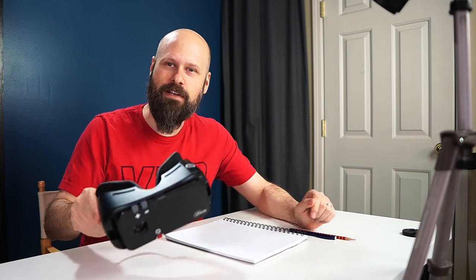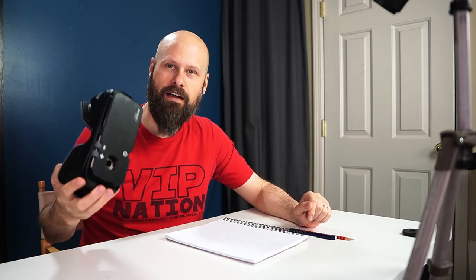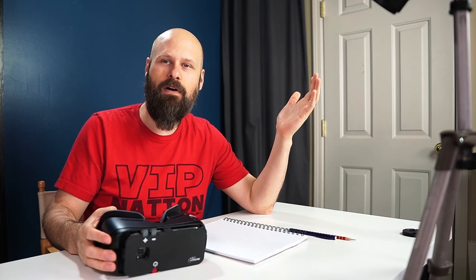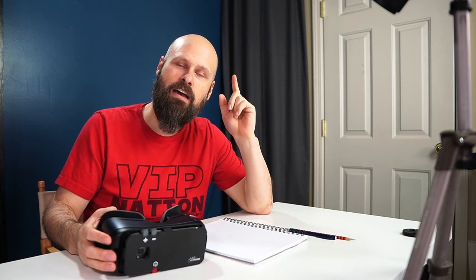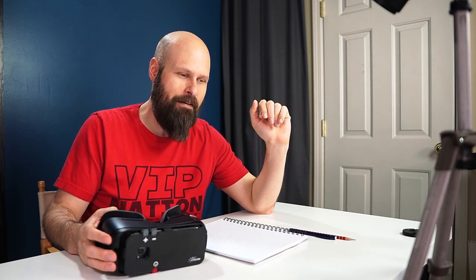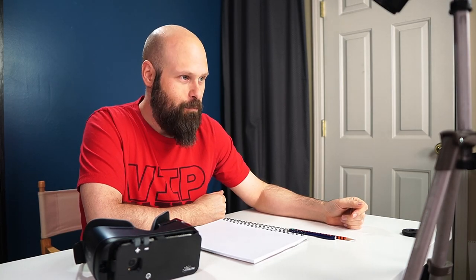I've always wondered if I would be able to do it using a wearable device. I've drawn pictures with CCTVs — digital desktop magnifiers — and it's great. But I've never tried with a wearable device, which is basically a digital magnifier strapped to your face. I was recently reminded about this by my wonderful sister. And since most of us are sitting at home right now because of the COVID-19 craziness, we probably have some extra time and might want to get back into old hobbies.